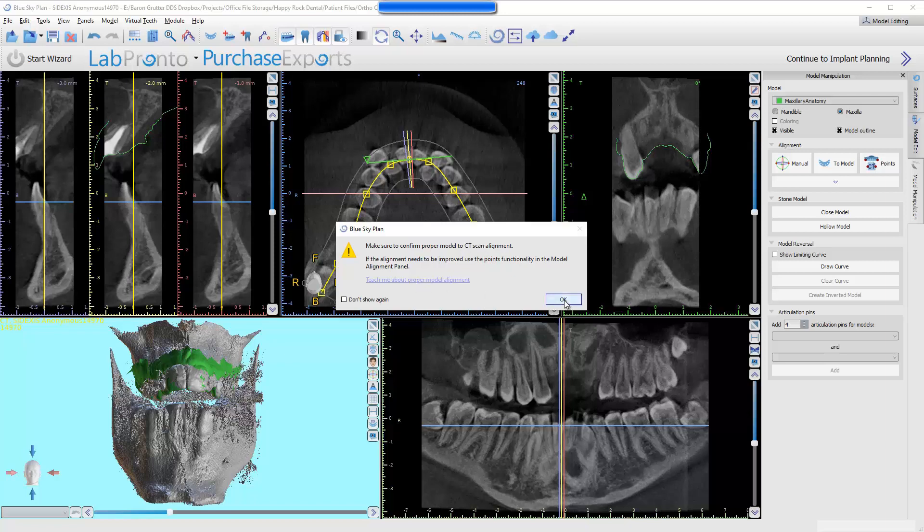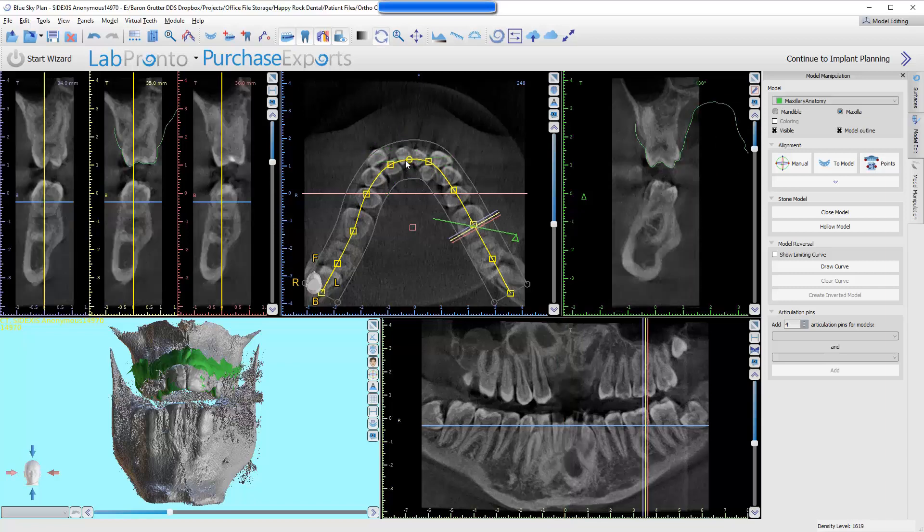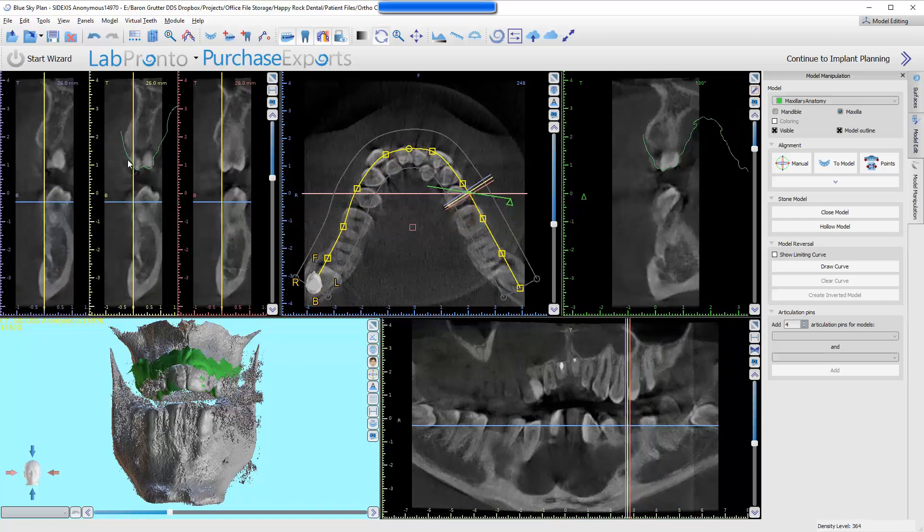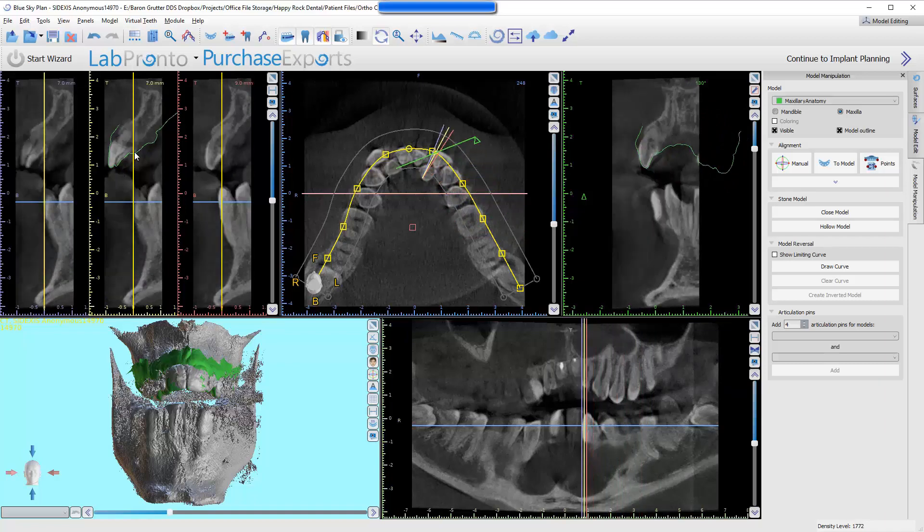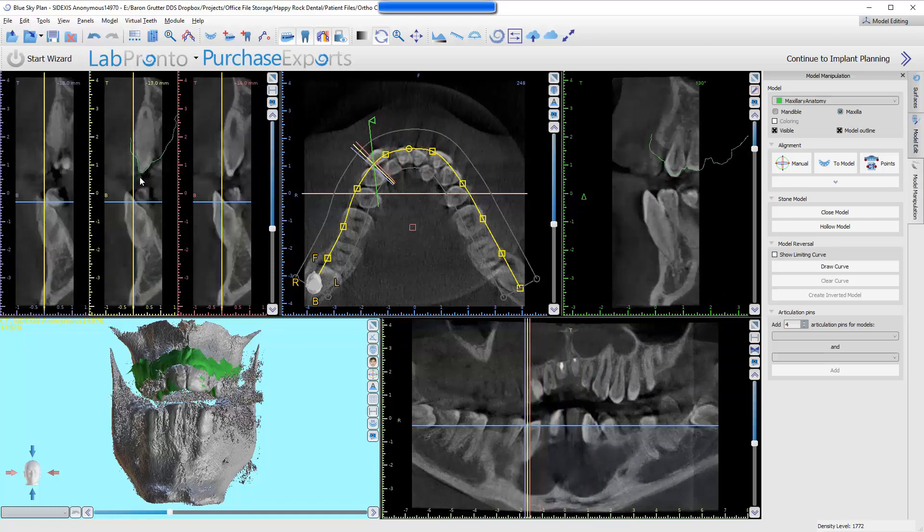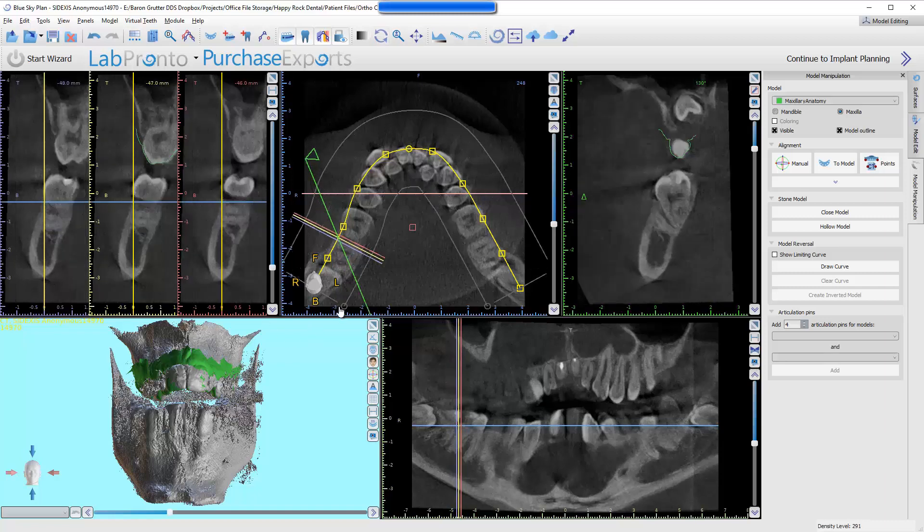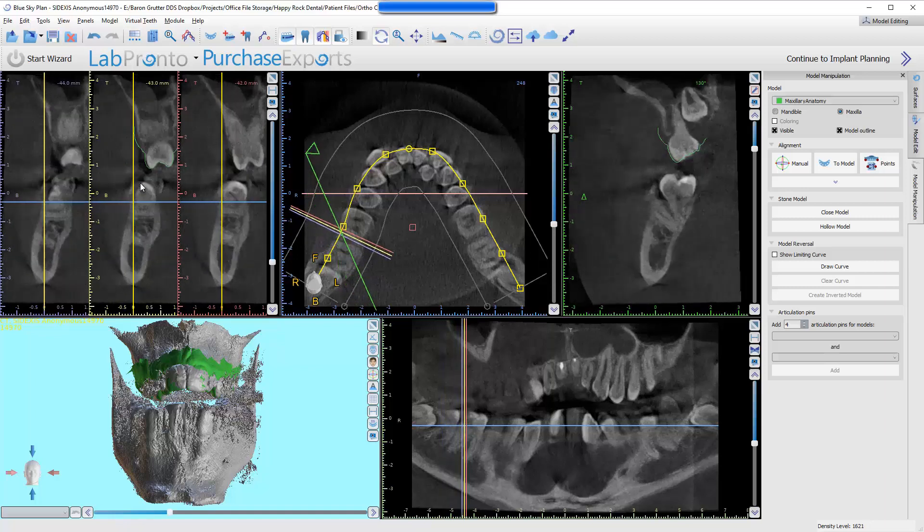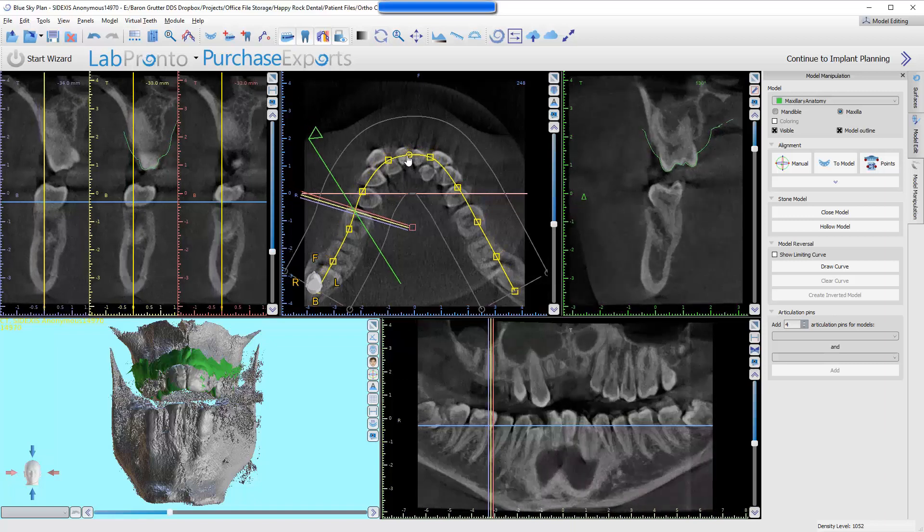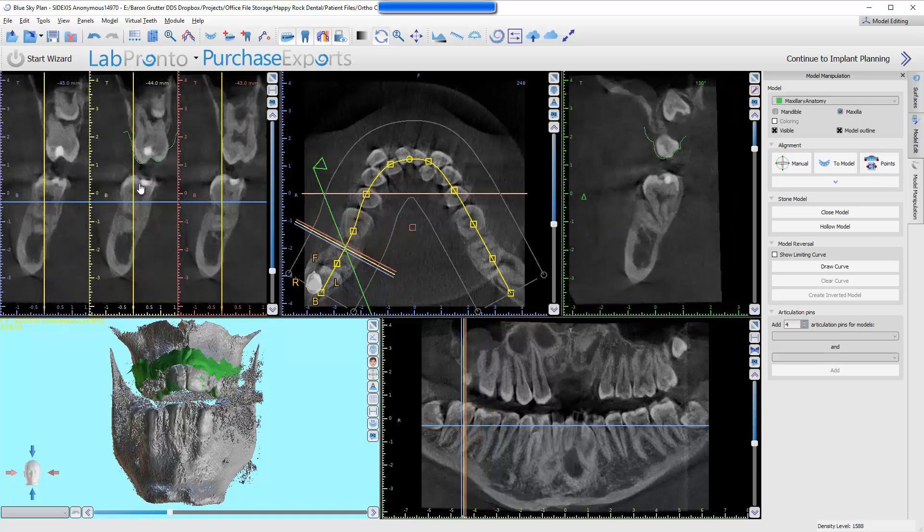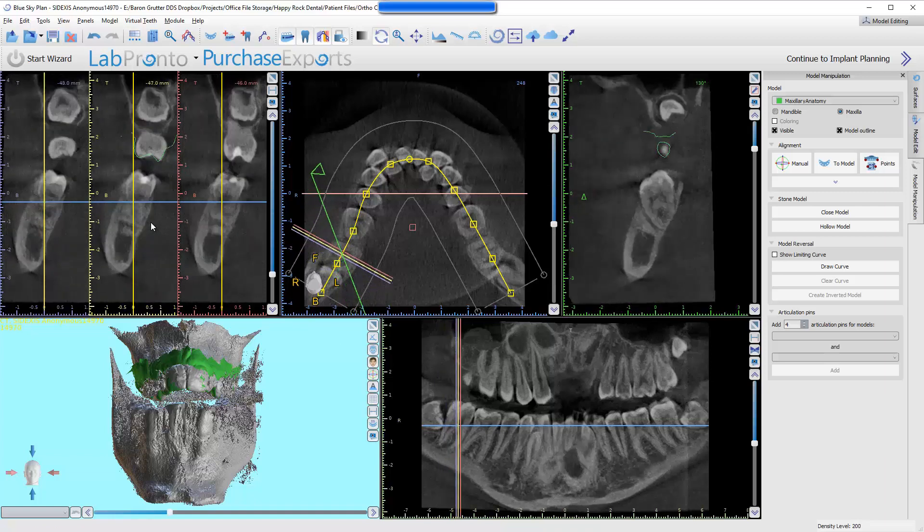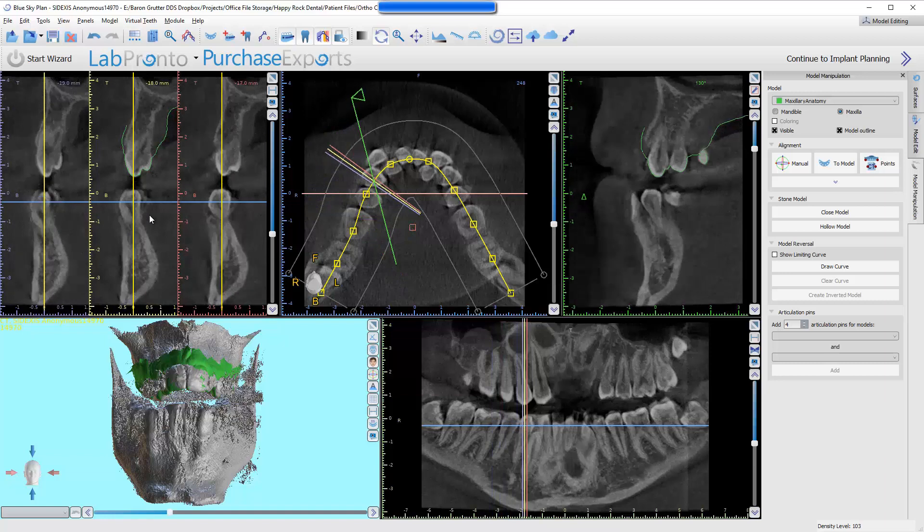It's telling us to make sure that it's aligned. Don't just assume that it is, and I 100% agree with that. So first of all, let's go ahead and change this a little bit so we can see a little better here. I'm up here in this top left view, and I'm just wheeling around. I can see that the green line fully envelops the upper teeth. Now all that's doing is assuring me that it is, in fact, well aligned. The focal trough isn't real wide. That's why it's black in there. If I want to make that wider, that's actually what I was adjusting before by moving the whole thing forward.